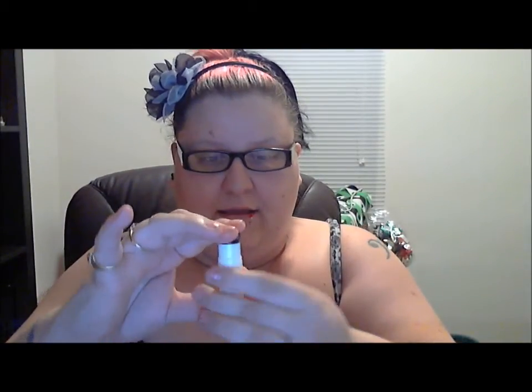You just wait to absorb a little bit of saliva, dip a clean finger in there, put it on the microscope, try not to get any bubbles, and then let it sit for five minutes. When it's dry, you put it back in and then you're going to look at it with a little green light. You guys aren't going to be able to see what it looks like inside, but you can actually look inside of it and see a pattern.